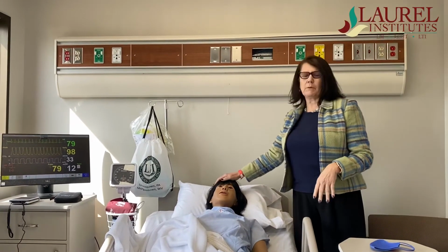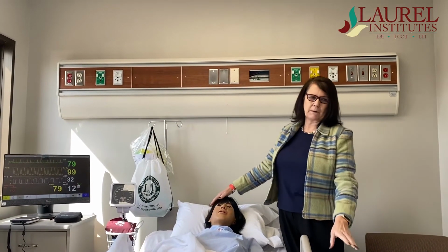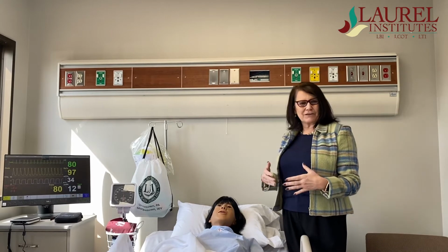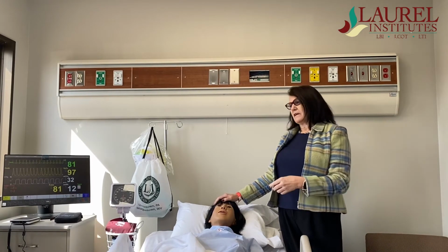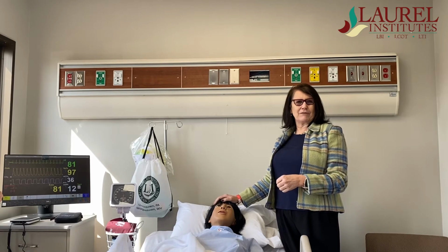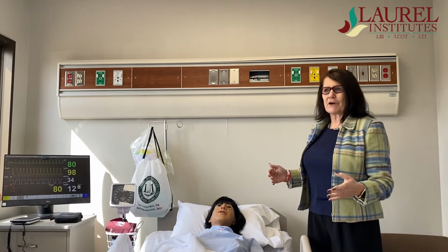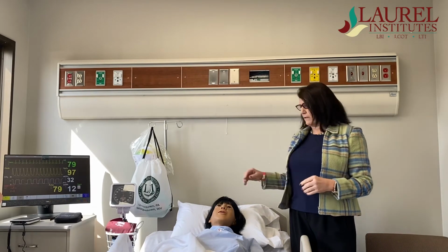Annie, poor Annie, she dies and comes back to life. We just push a button and she's back. So the students can do that, maybe make a mistake on Annie. We catch it, it's a mistake you will never forget if even Annie dies on you. Therefore, it's a safe environment. You go to the hospital, you'll remember what you did on Annie and not do that on a patient.